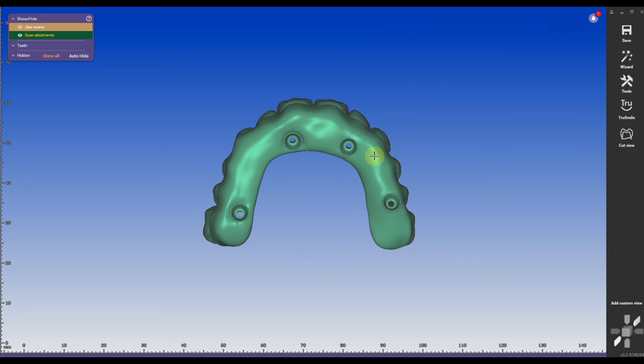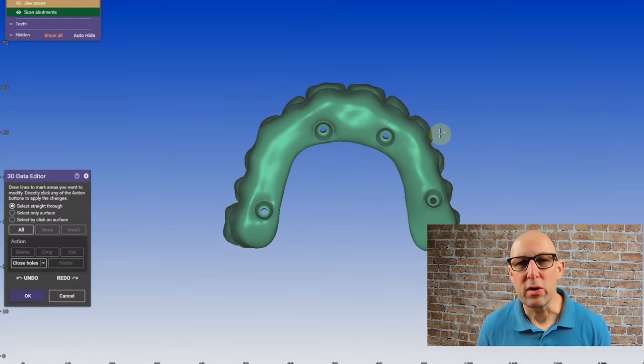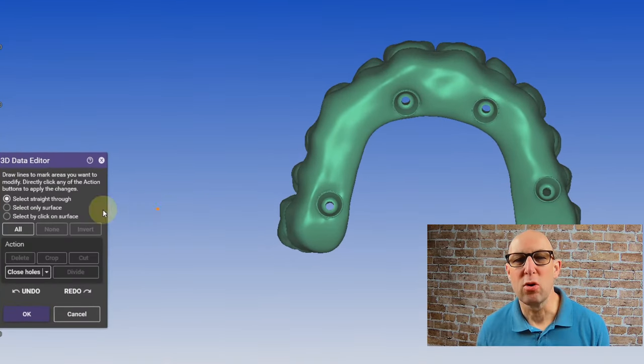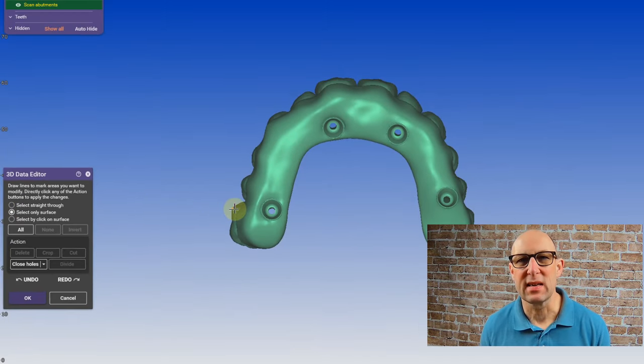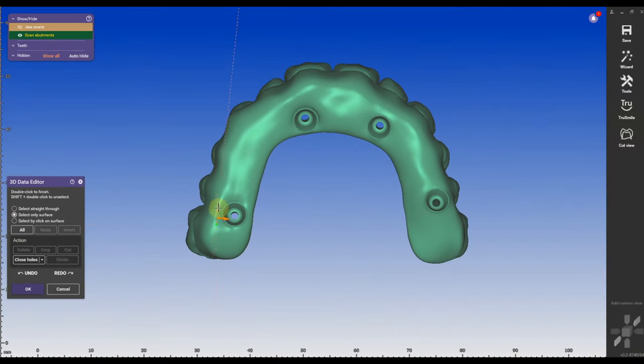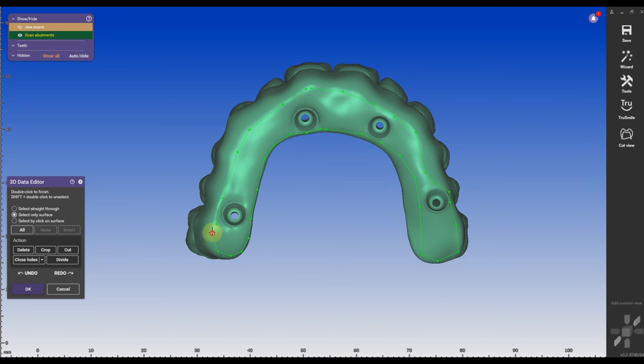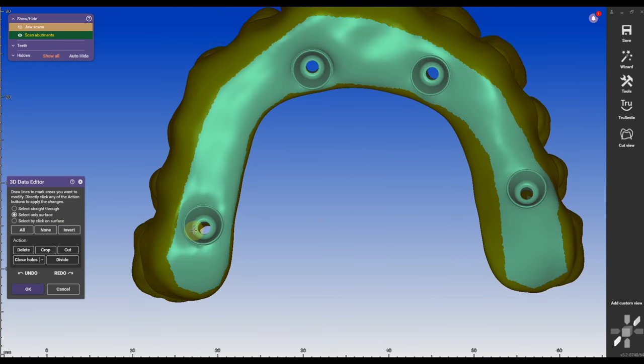I'm going to go to expert mode, I'm going to right click and press edit mesh. In the menu only select on surface and it will only mark the first layer, it doesn't go all the way through. Then I mark just quickly around the multi-unit sides. I'm going to invert some mesh and I'm going to delete the rest of the mesh.